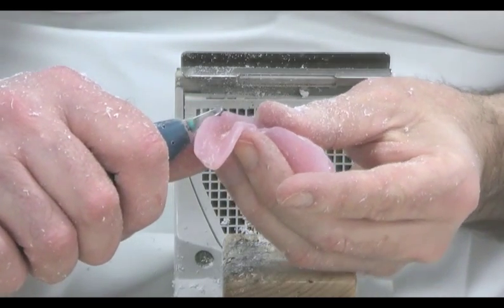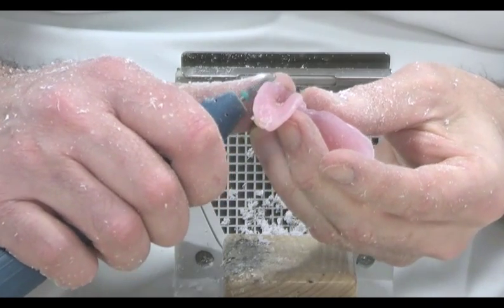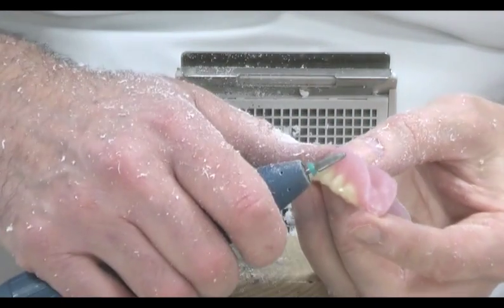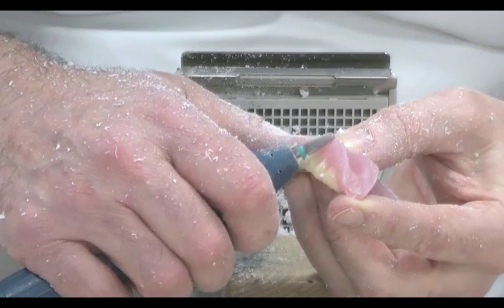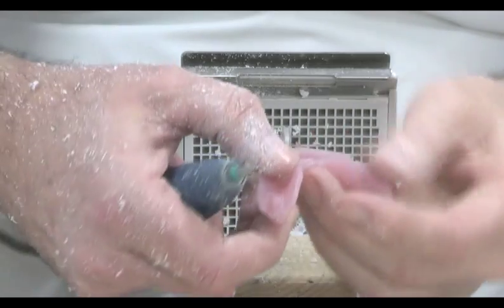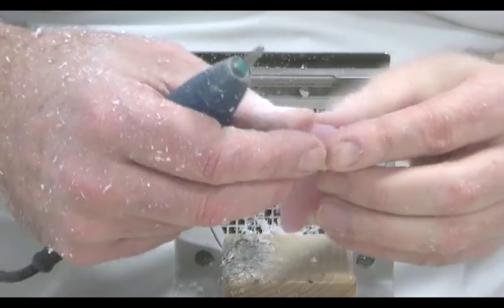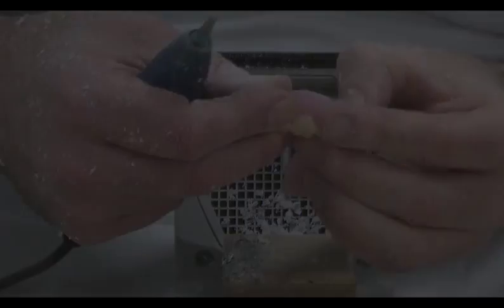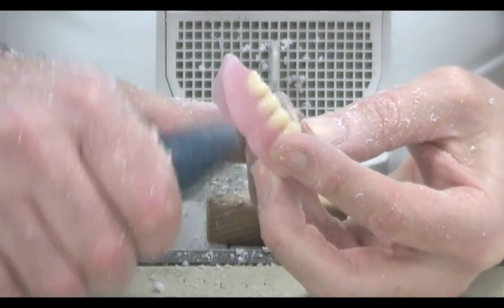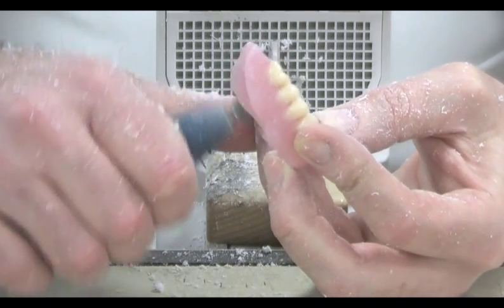It is essential that we identify and notch the points of muscle attachment in order to attain a good fit. We tend not to touch the fitting surface where possible, but if you can feel any sharp edges to it, then they can be removed with the very gentle use of a stainless steel rose head burr.